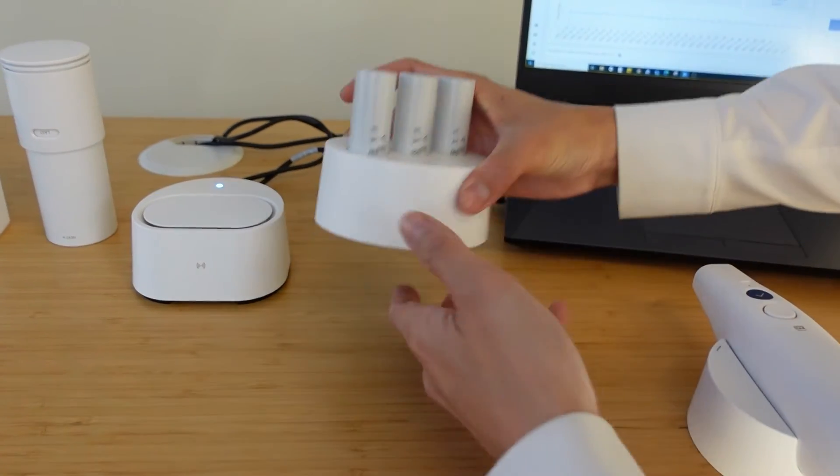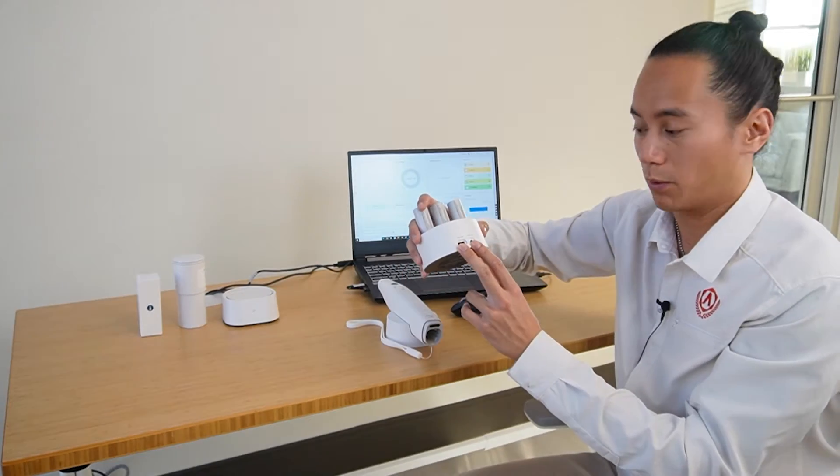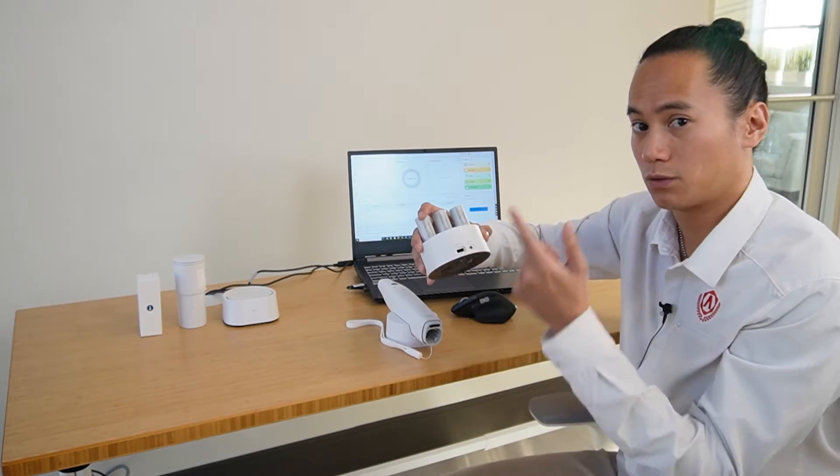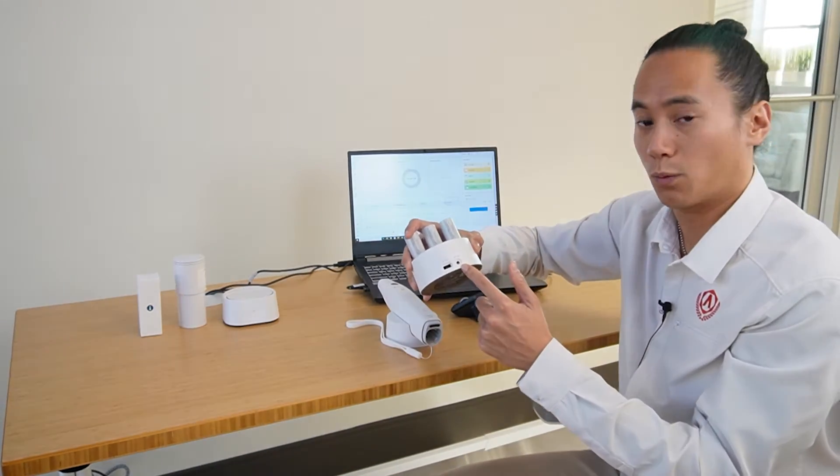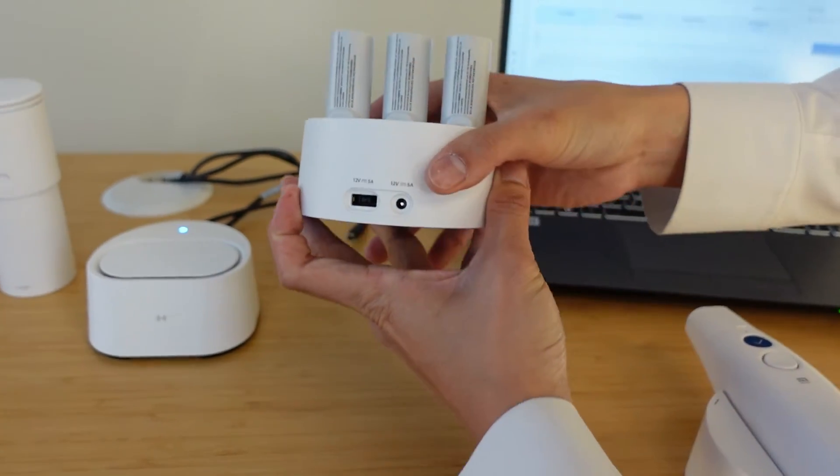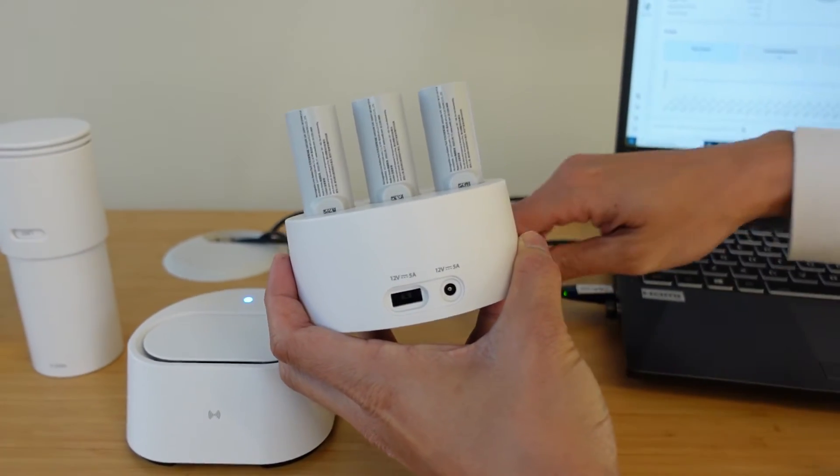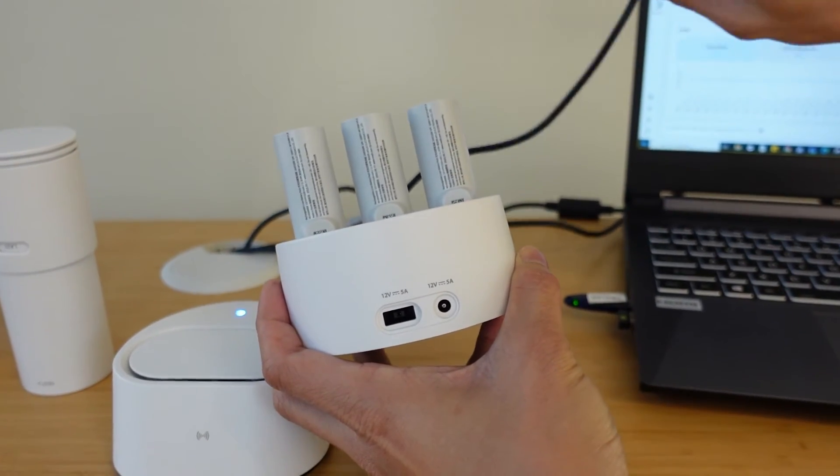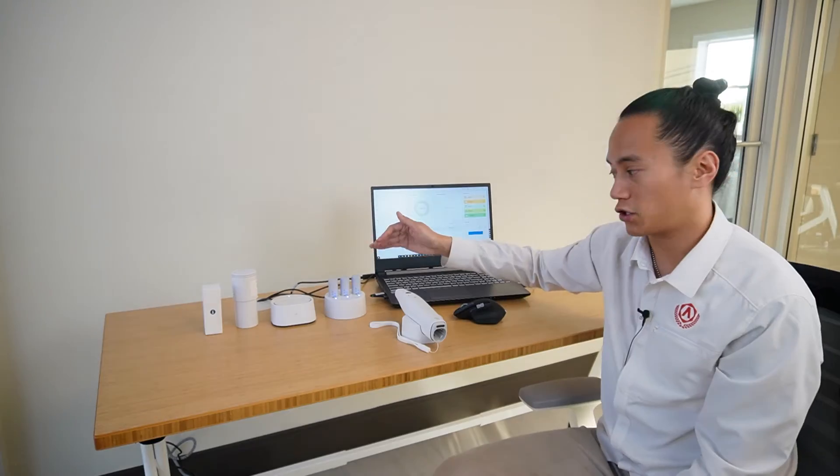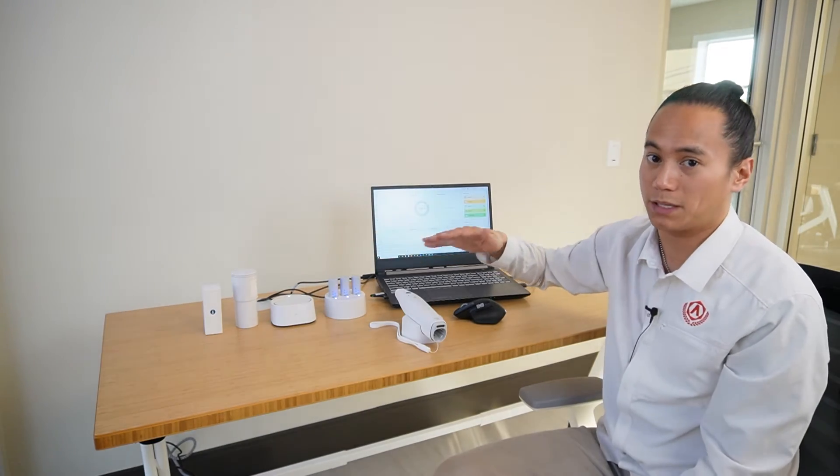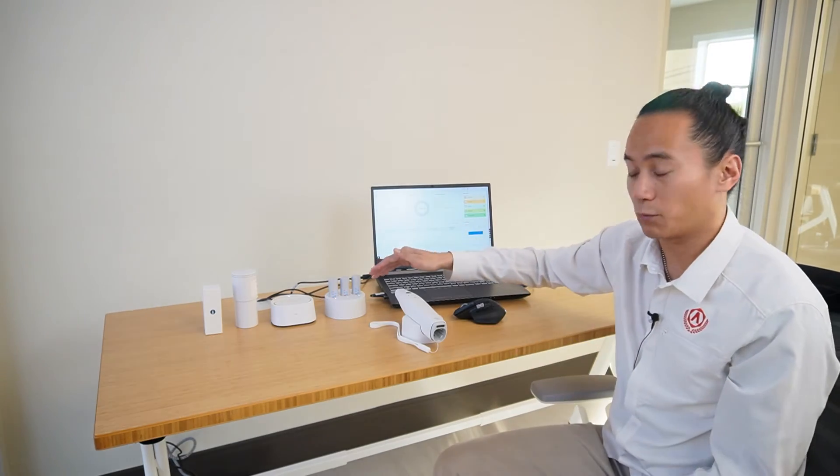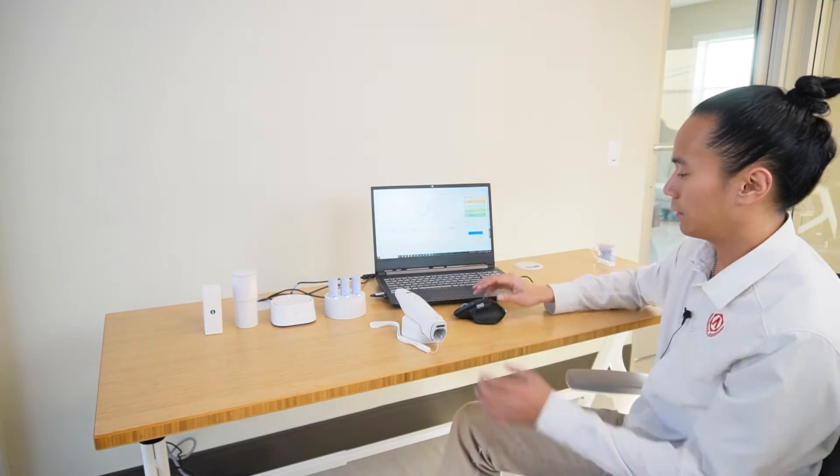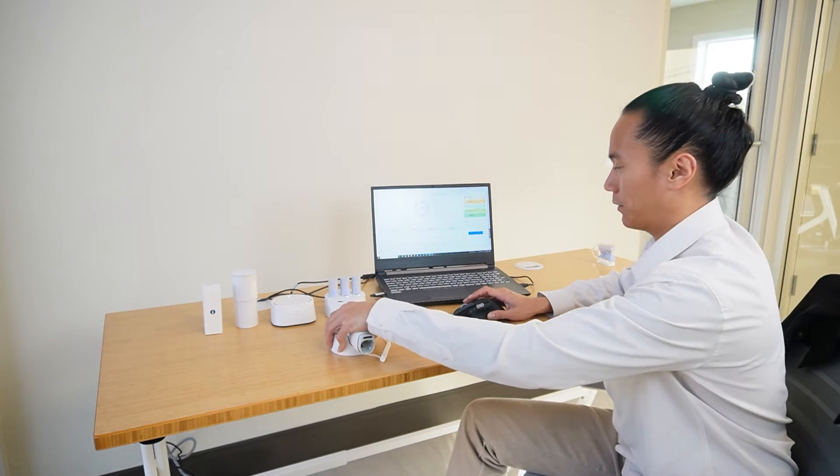The battery charging station will have two power ports. You can choose either to plug in via USB to your workstation or directly to the wall outlet. For this setup, we're going to go directly to the wall outlet. When your batteries are charging, three blinking lights means that each battery is charging. Three solid blue lights means that your batteries are fully charged. If you have a red light at all, it means there's an error. We're going to put this off to the side for now.